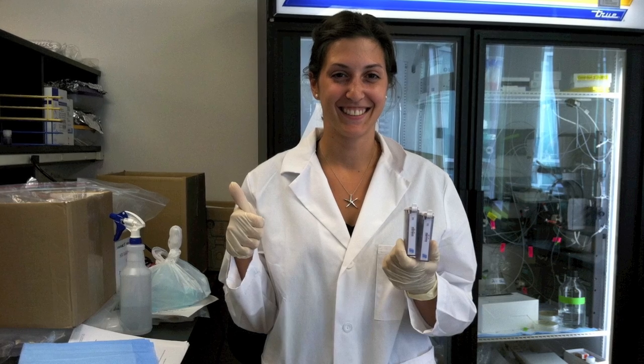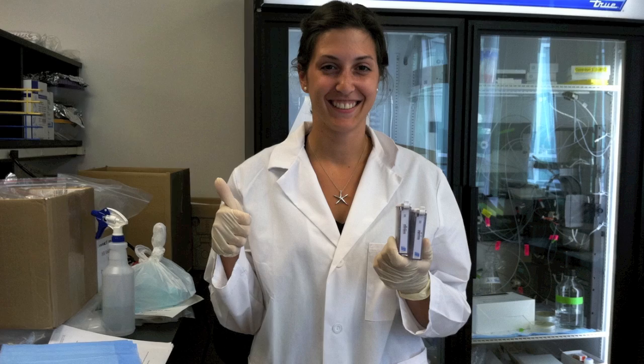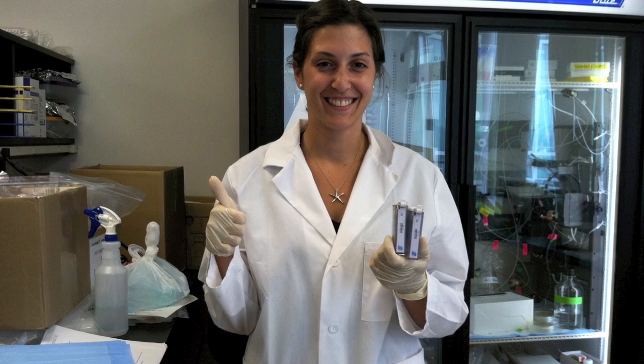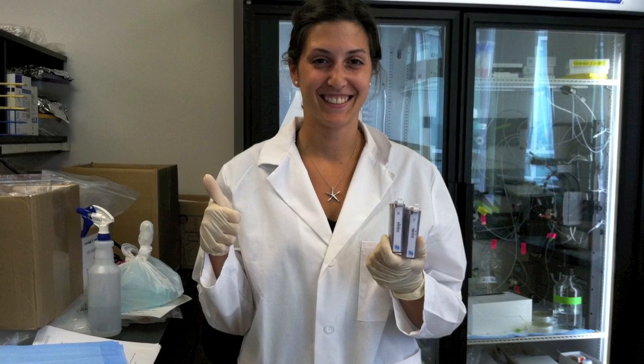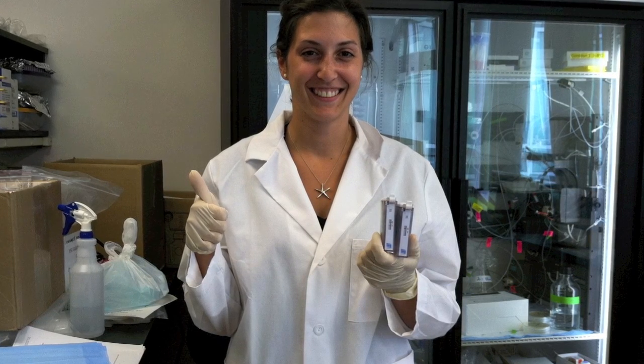There is no nucleic acid extraction, no instruments to purchase, and no cross contamination, making BioHelix's ISOAMP HSV assay easy to use, cost effective and accurate, not to mention a rapid total turnaround time of just 90 minutes.